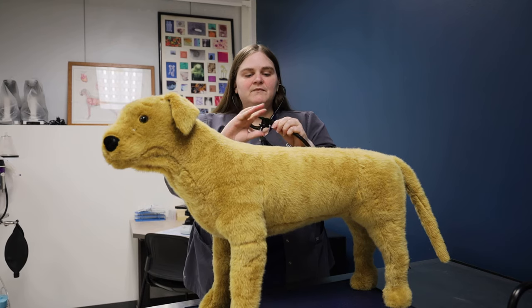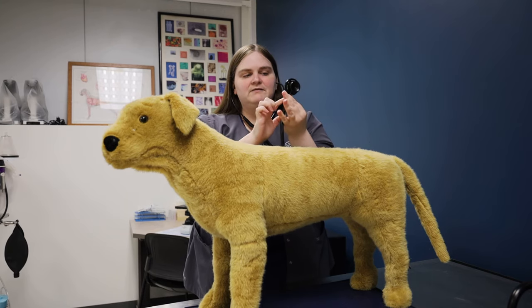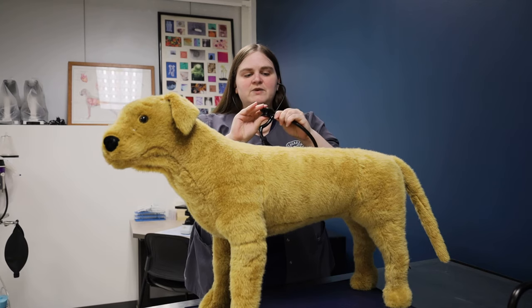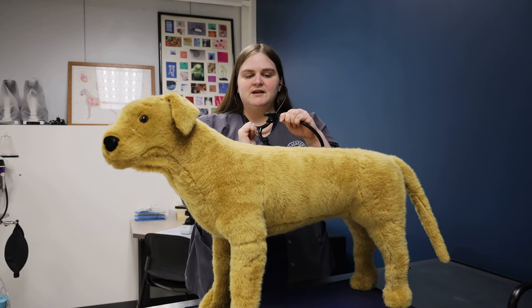If we don't hear anything, we want to twist this, holding very tightly here. Just twist, tap again to make sure you hear something. I already heard it on this side, but twist — I don't hear anything on this side. Twist, I hear it on this side. So then I know that I'm hearing through this side of the diaphragm.